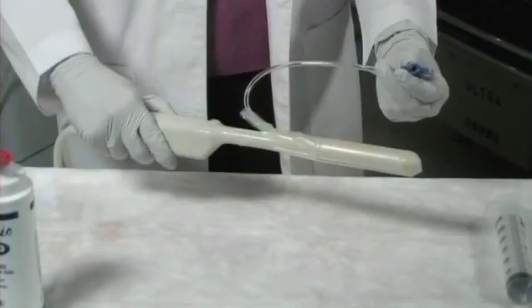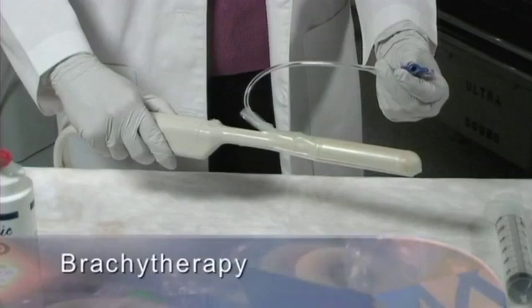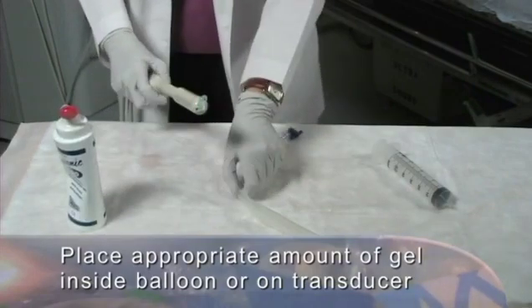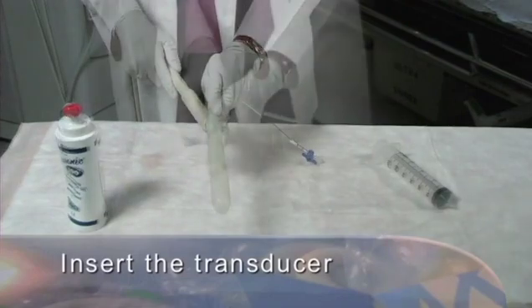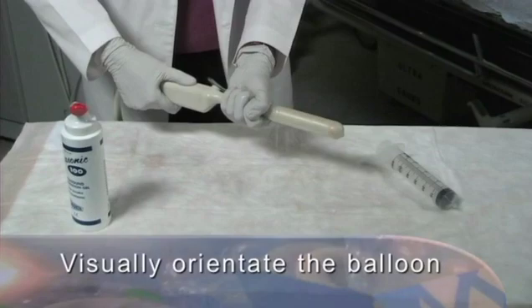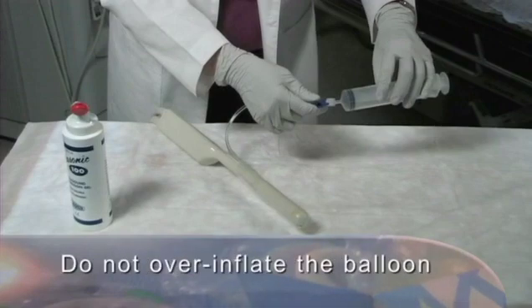An alternative covering method for transrectal procedures may involve use of an endocavitary balloon. This transducer standoff device is an alternative example of how to perform scanning and transperineal procedures for needle guidance, core biopsy, fiducial marker placement, brachytherapy, or cryotherapy. Placing the appropriate amount of gel inside the endocavitary balloon or on the transducer face aids in scan quality, application, and removal of the balloon. Insert the transducer into the balloon with the fill tube oriented in top center of the transducer. Pull the balloon tightly over the transducer face, removing wrinkles or air bubbles. Visually orientate the balloon so lateral seams are a symmetrical distance from the longitudinal array. Use a 30 cc syringe to fill the balloon with saline solution. Aspirate until air is removed. Do not over inflate the balloon.